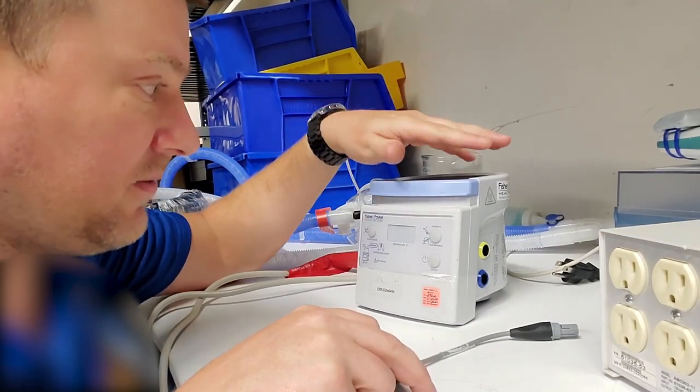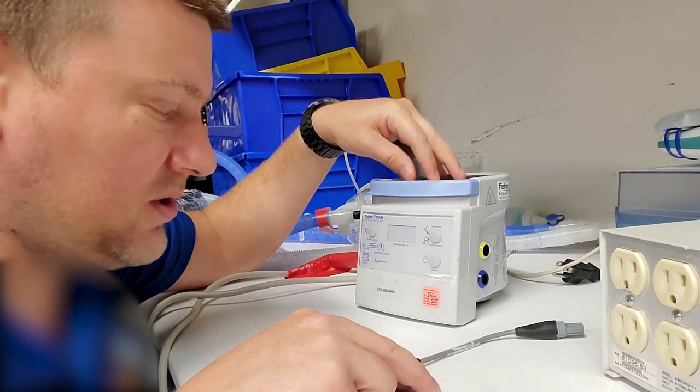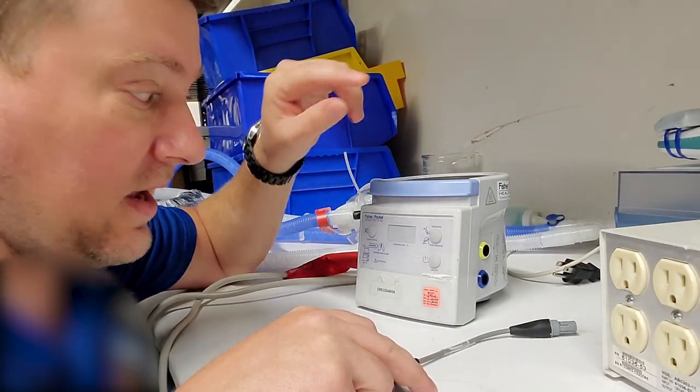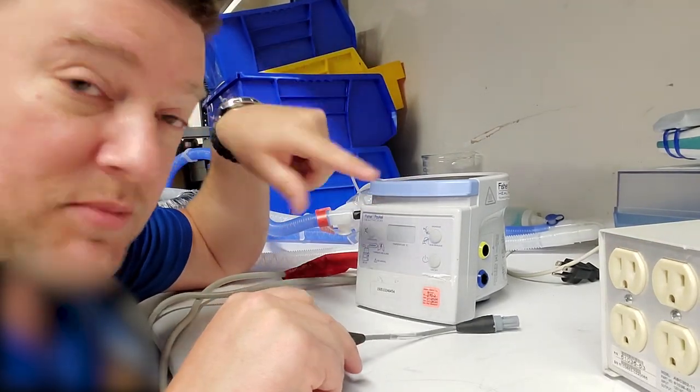This is the Fisher and Paykel MR850, and in order to do a calibration for this guy—I'm not going to run through the full PM—but they say you don't need to do the voltage calibration on it if it has not been modified and it appears to be working normally, so you just need to do a temperature calibration.